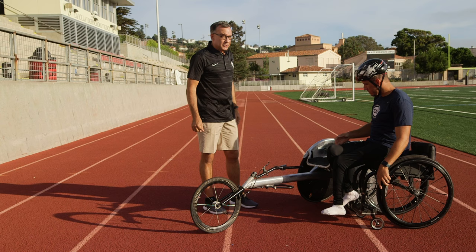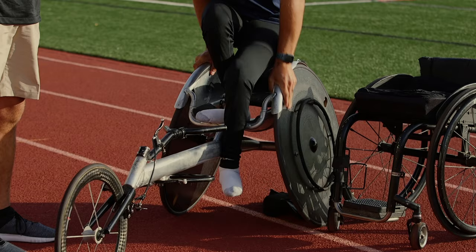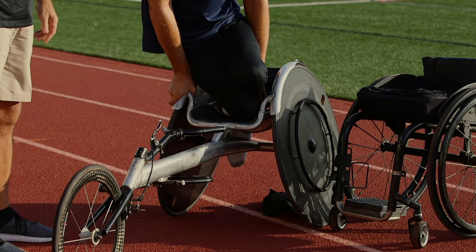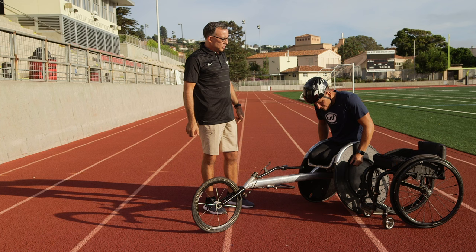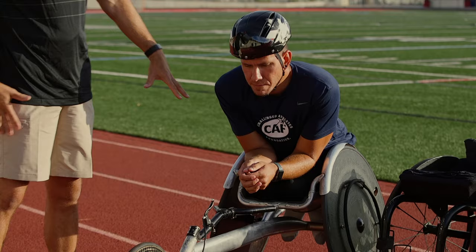This position is great for athletes who can flex their knees completely. If athletes do not have the ability to flex their knees, this is not an ideal position — it will cause them discomfort. You can see as Eric did that, he put his hand on the rim of the chair and a hand on his own chair, lifted himself up and over and then gradually transitioned down into the chair.